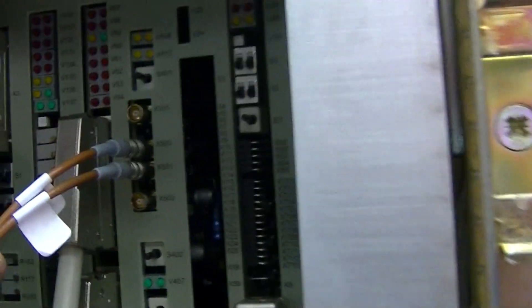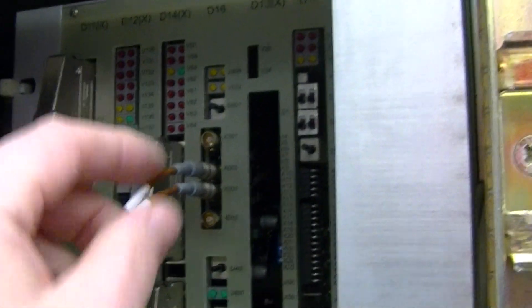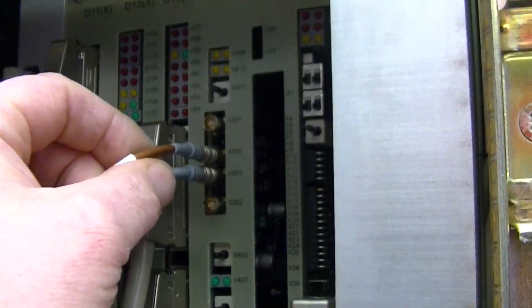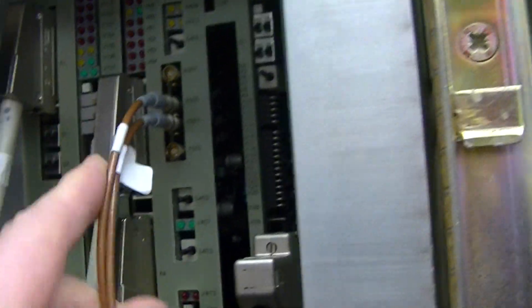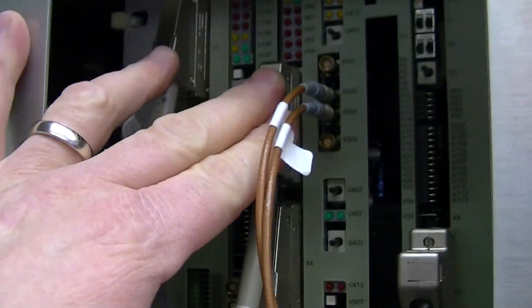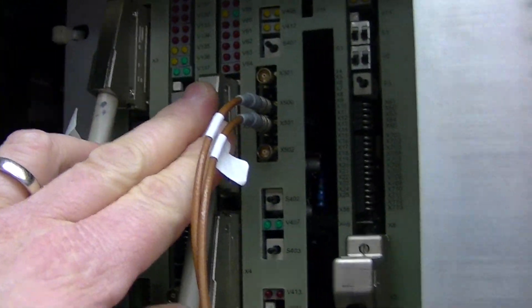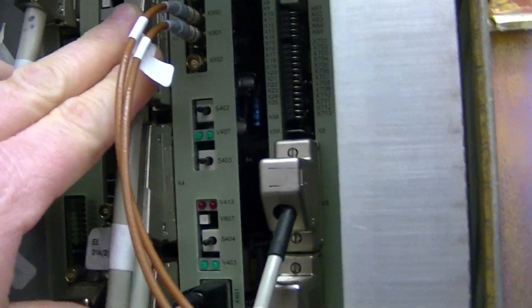These are your 500 and 501. These are for your loops for timing. The D14 board is the modulator. This is what actually powers on some of the sequences directly to the gradient amplifier.